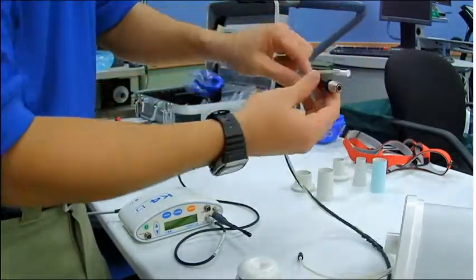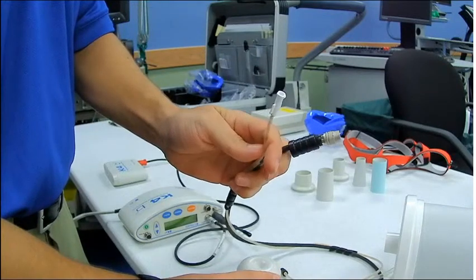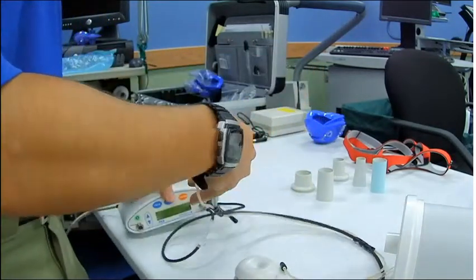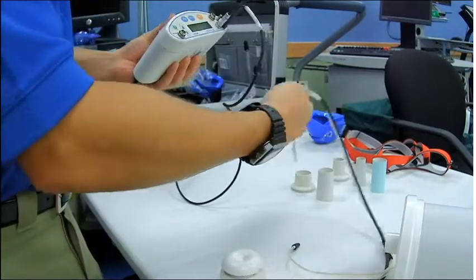I'll connect the turbine. There's the air sampling line and the actual hard connection to the K4 unit. We'll start with the hard connection.